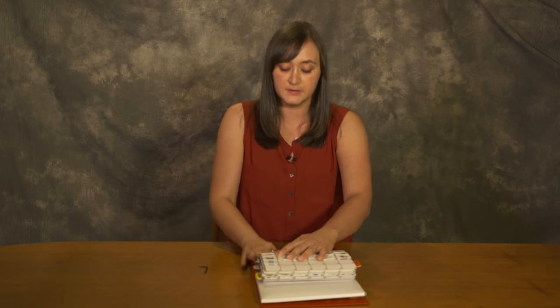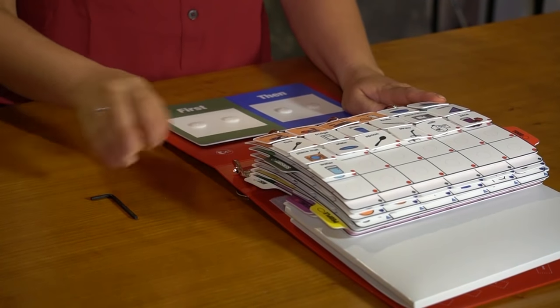Inside the binder, you're noticing a spine which allows the clinician to use a hex key to open and close the binder inserts and the spine.